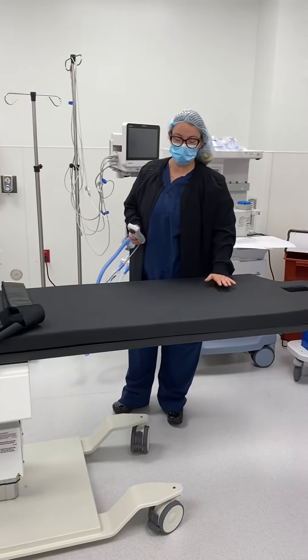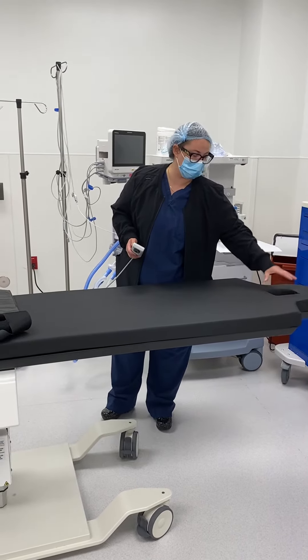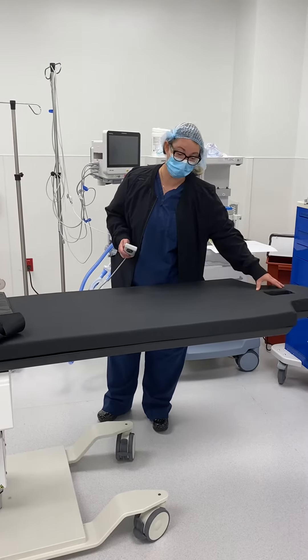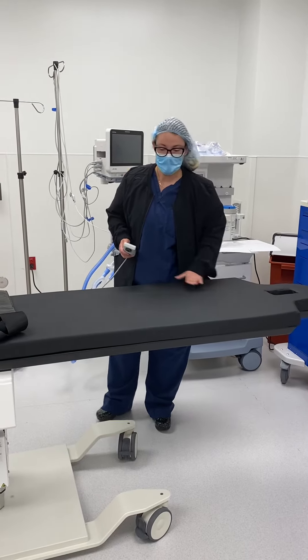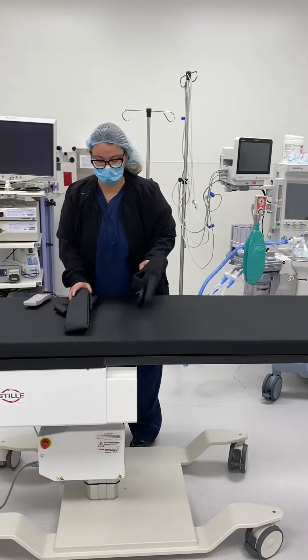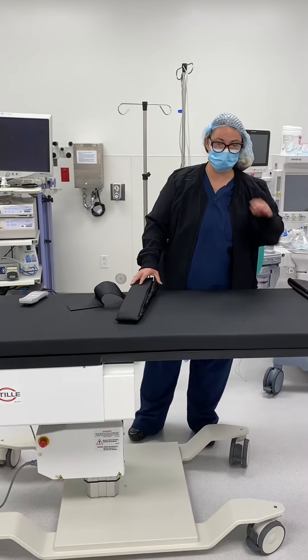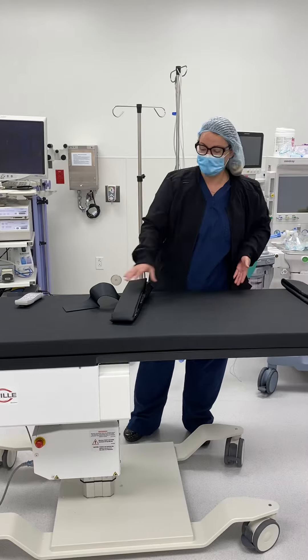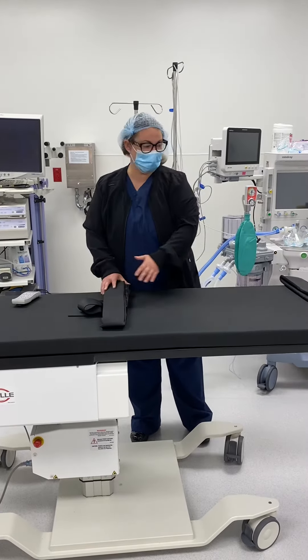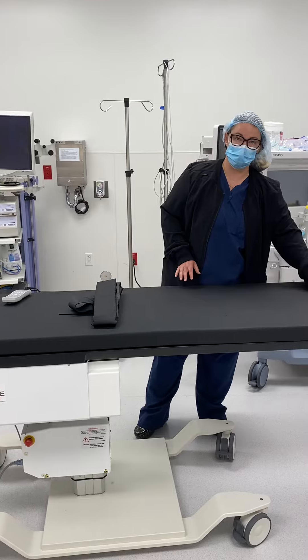Most patients on this bed will lie prone with a little face mask here. You'll always speak with anesthesia to see exactly how you want to position them. We do have two belts here. You usually want to secure them twice if possible, because it's a narrow bed, so you usually want to do this around the thigh area and as high up as you can if it's not a cervical injection.